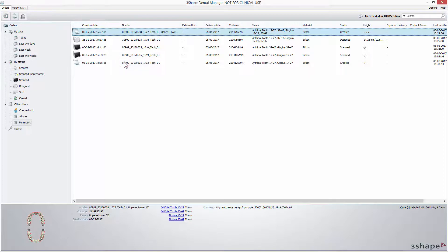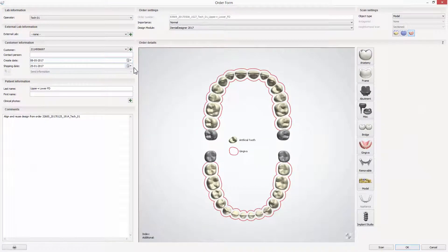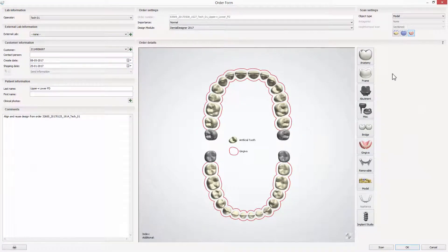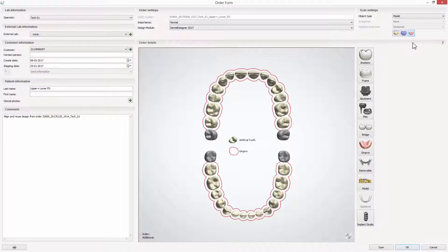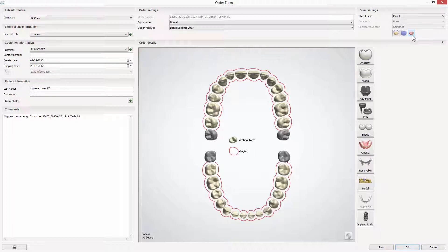Modify the order updating the assembly type and the material for the final denture. The order has the denture pre-design option already chosen, meaning that the try-in scan will be added to the scanning workflow.